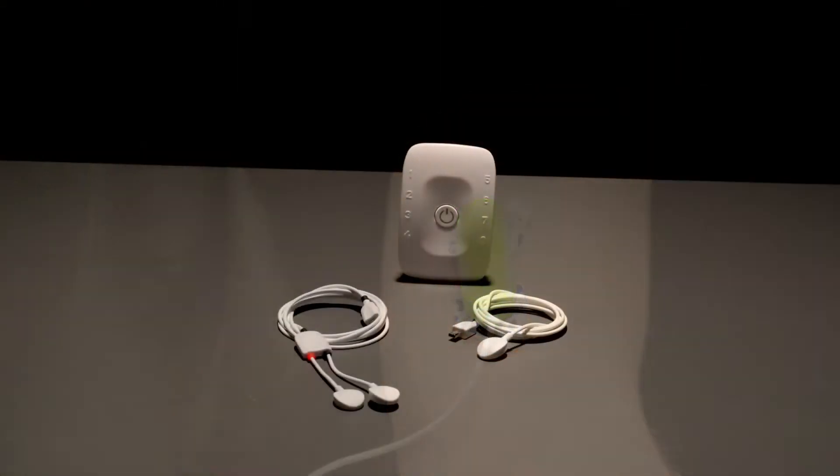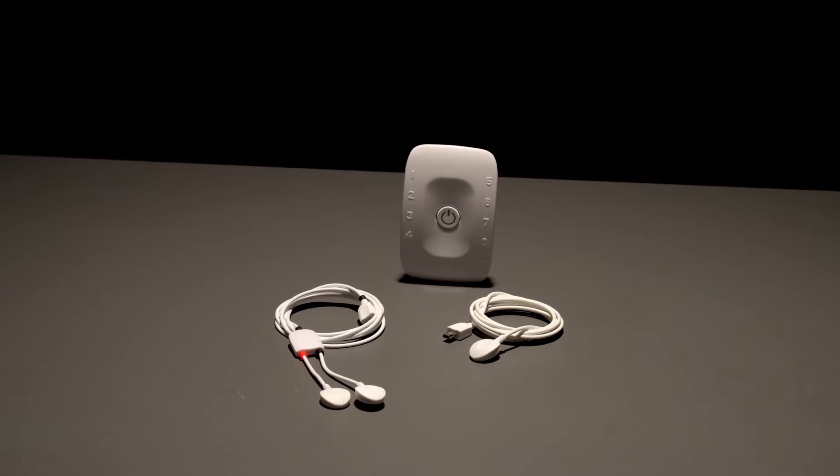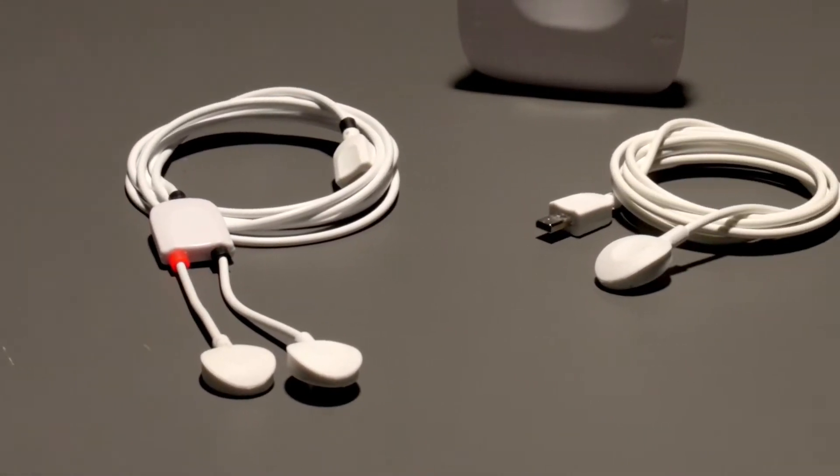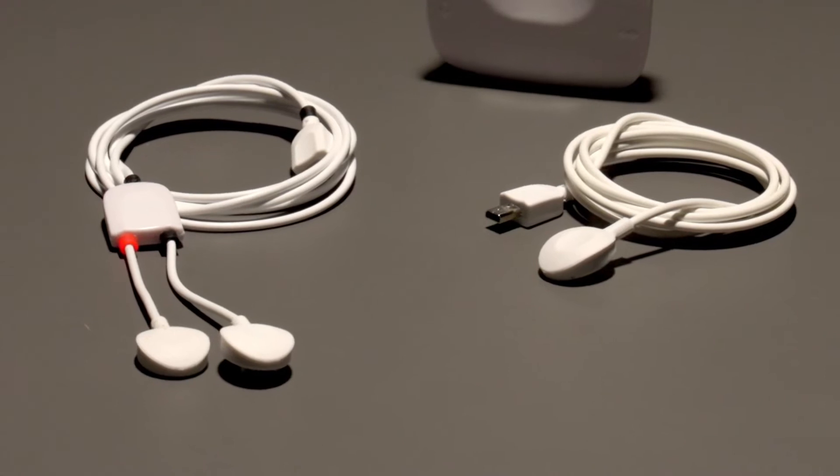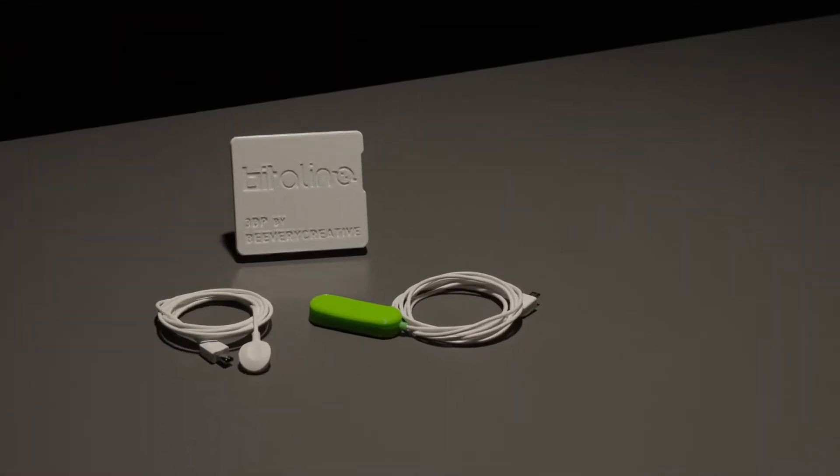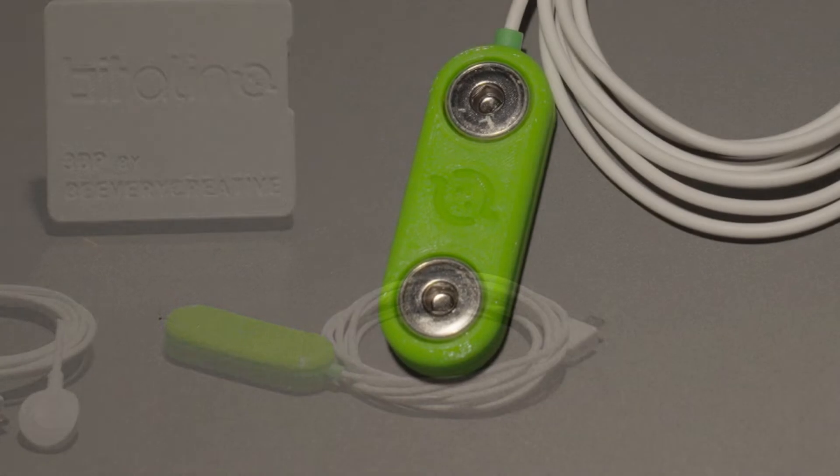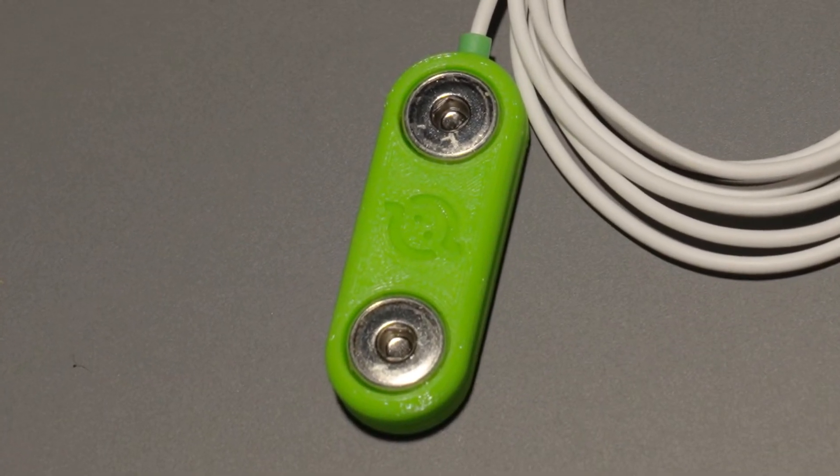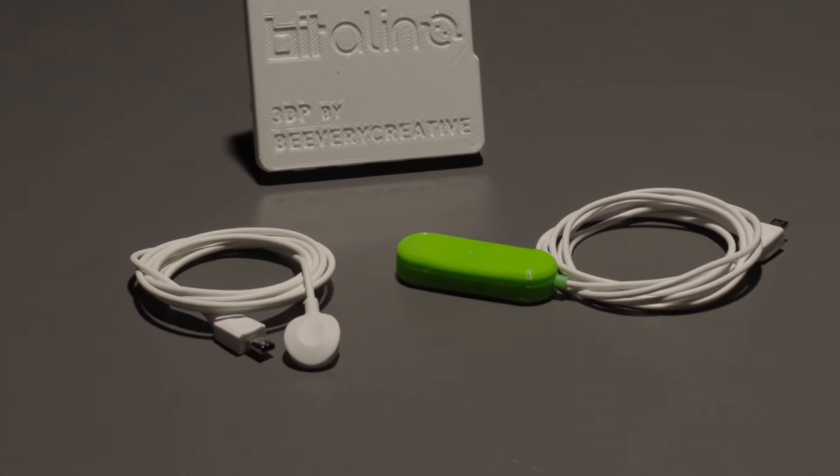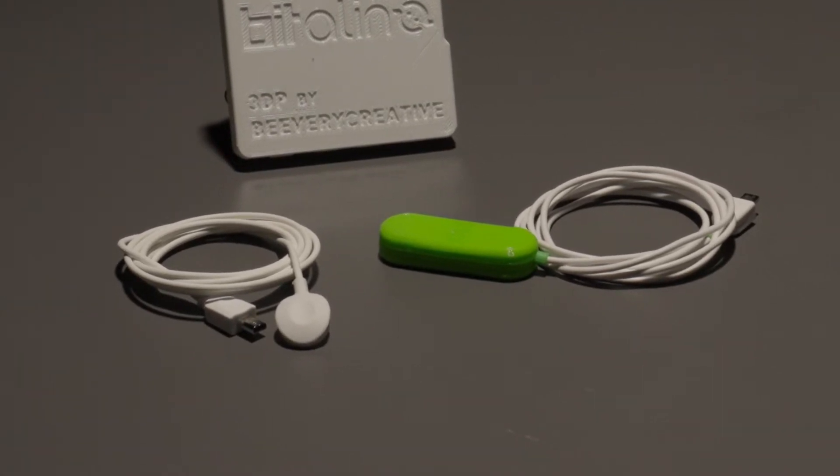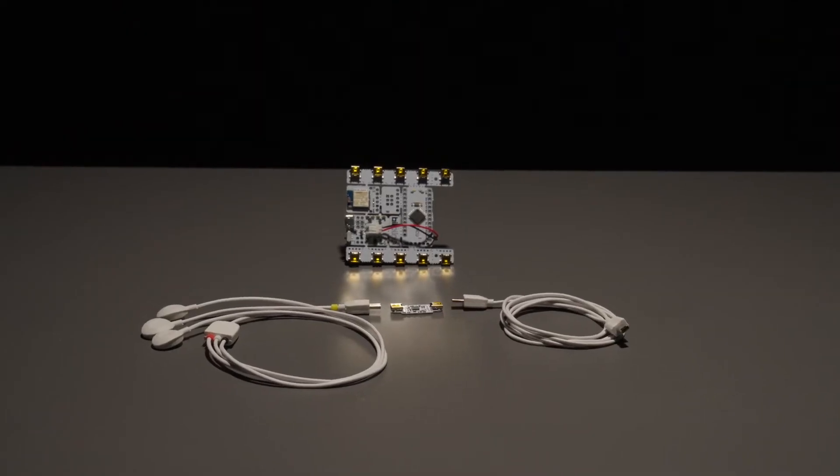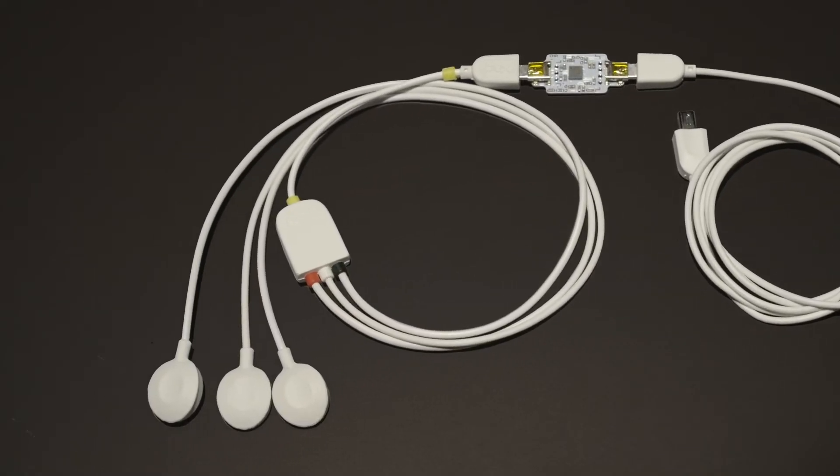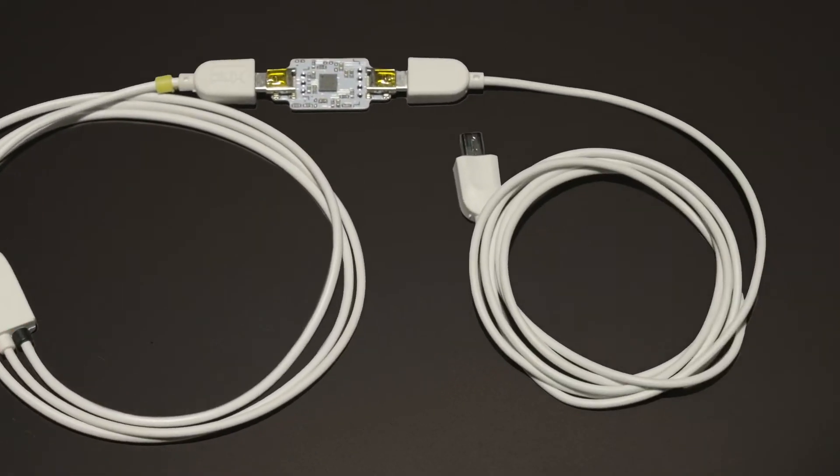The Biosignal PLUX EMG sensor has a two-lead cable and must be used in combination with a one-lead reference cable. For Bitalino we can use the pre-assembled EMG sensor which has an assembled electrode distance. This sensor must be used in combination with a one-lead reference cable. The Bitalino EMG sensor for the plugged board has to be connected to a three-lead cable and a cable to connect to the board.